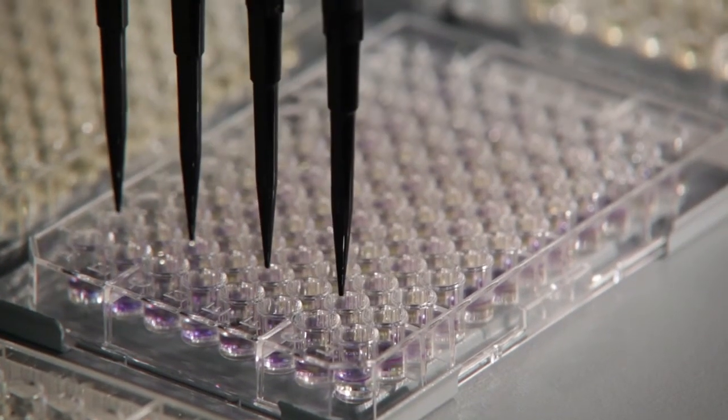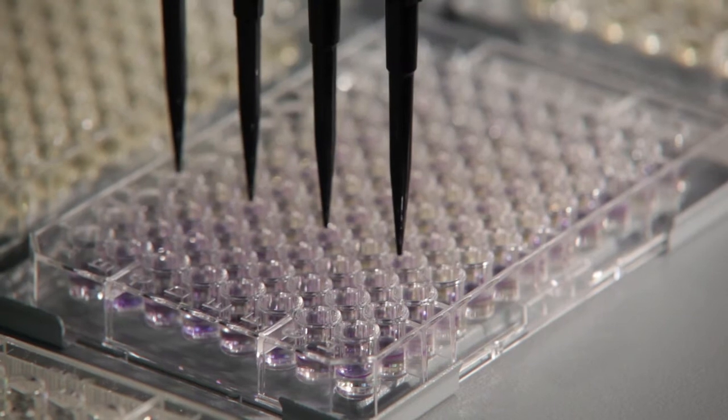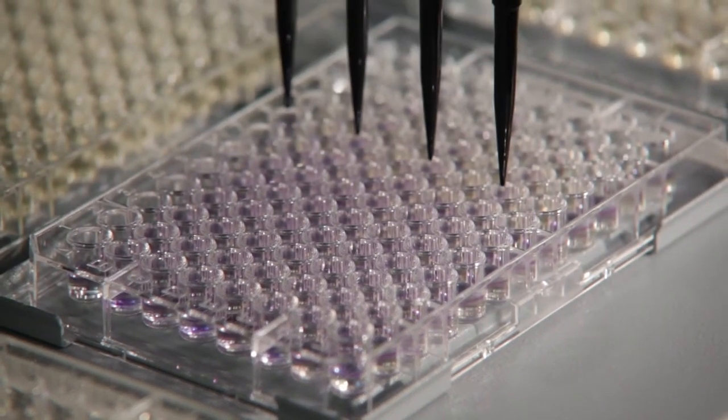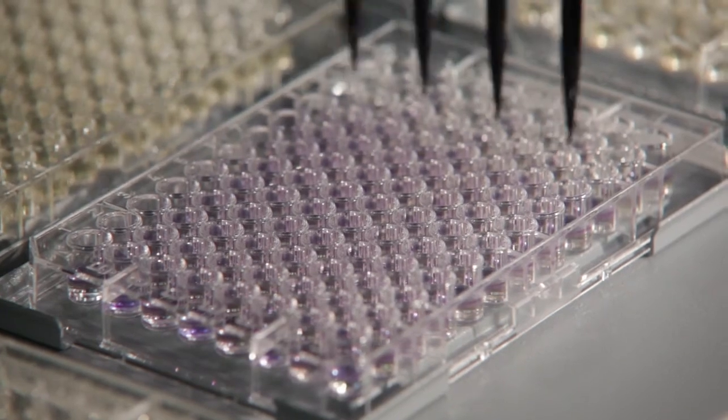The Micronaut AST plates are then inoculated. The incubation, measurement and evaluation of the Micronaut AST plates is performed according to the standard procedure.